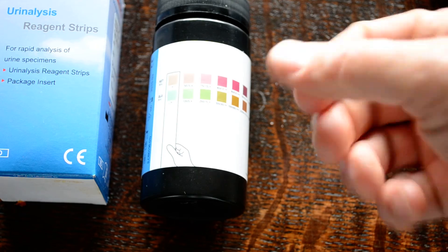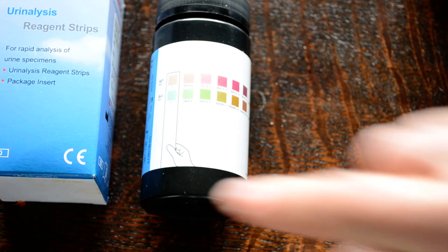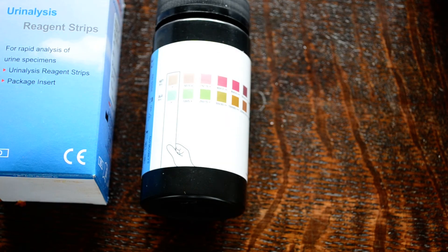If you get any test strips out of the pack and find that the corresponding dry color level doesn't match the all-negative results, that is an indicator that they have turned, absorbed moisture, and deteriorated. I'm afraid you have to dispose of them and buy a fresh batch to resume testing — you can't automatically assume that just because they're still within their expiry date the function of these tests is going to be 100%.